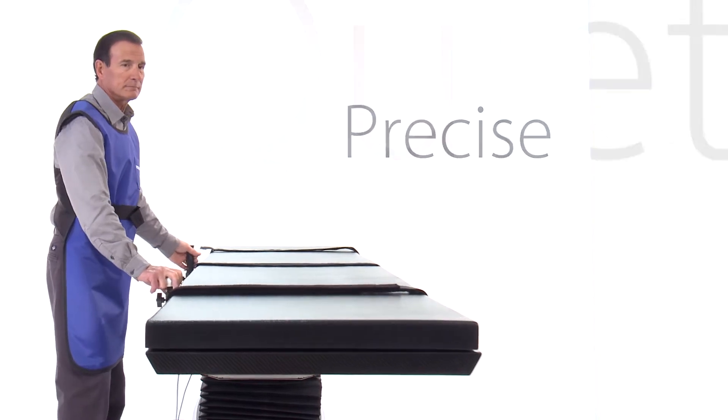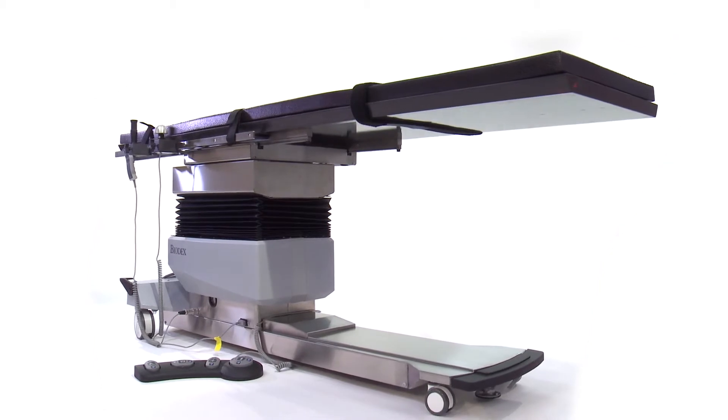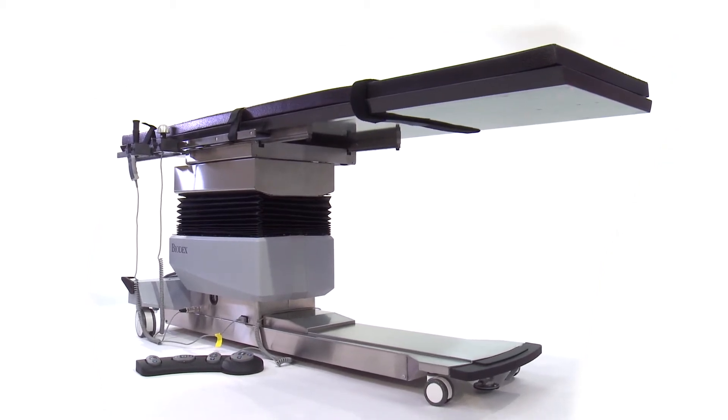Stable, precise, quiet, and vibration-free, the Biodex C-Arm Table 840 is uniquely engineered to achieve optimal image resolution.